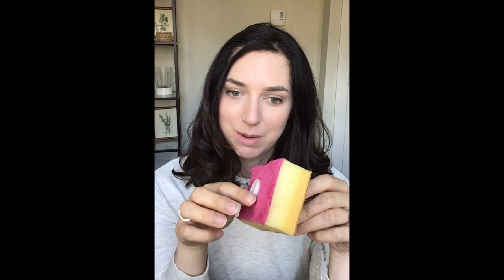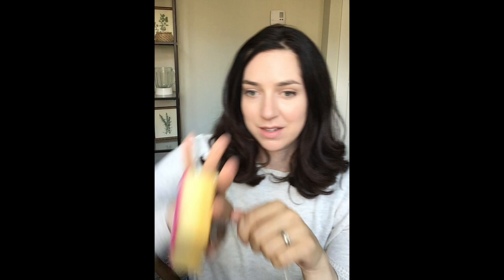This would be the outside of the body with the external bumper that stops the tube from moving inwards, and on the inside of the body this represents the stomach lining, and this section here represents the abdominal wall. You can see what the bumper would look like on the inside of the body. You may be wondering how does this tube ever get removed — these tubes are designed to simply be pulled out. The internal bumper is flexible enough that if you pull hard enough on the outside, the whole bumper will squeeze through the stoma. So traction removal — meaning pulling — is probably how a bumper tube will come out, which can be perceived as a downside since it's a bit less comfortable to have the bumper pass through the stoma, though it's over with quickly.